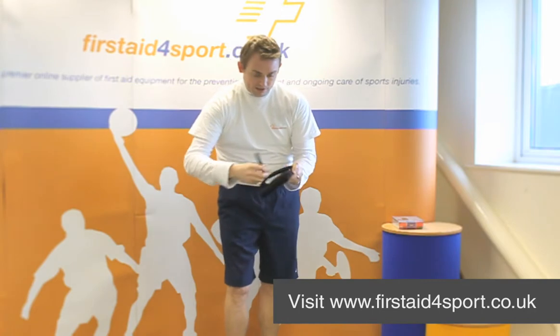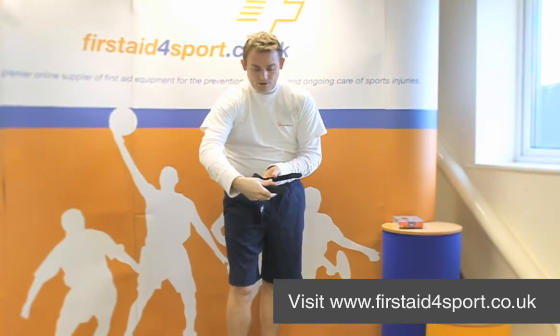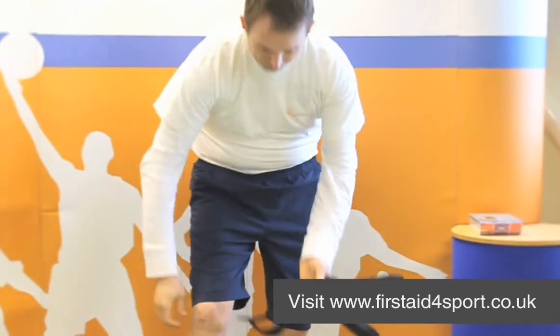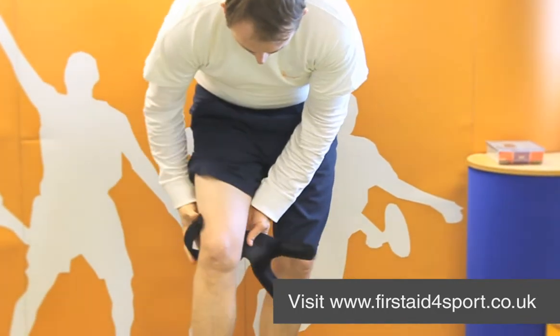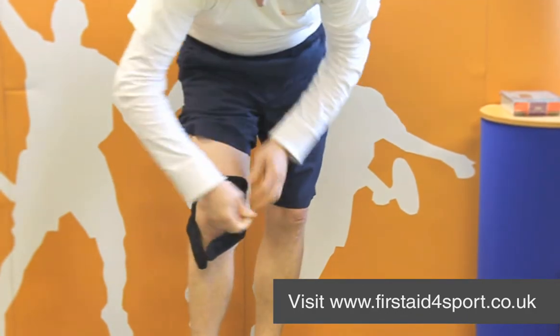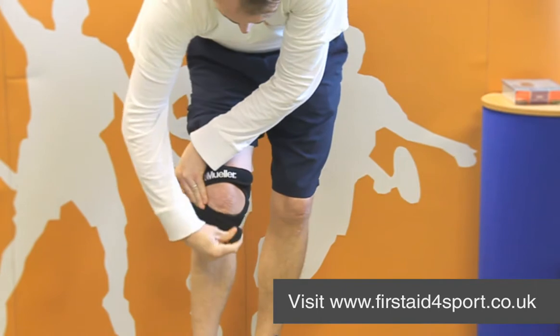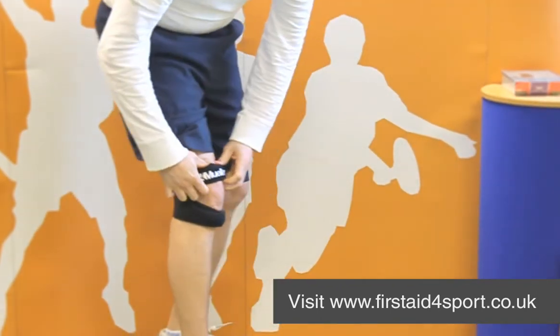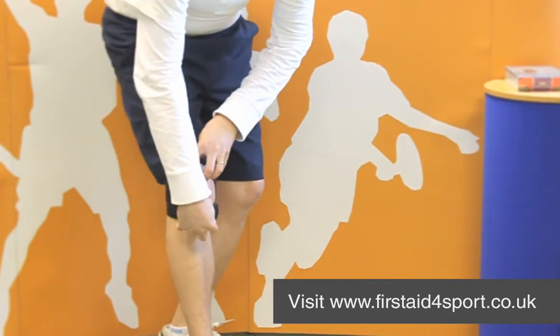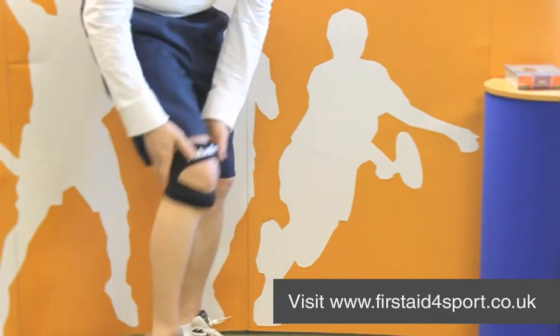This is designed with a top and bottom shock absorbing system to fit around the knee. It acts as a shock absorbing system because the band at the top and the band at the bottom just reduces the direct pressure into the knee joint and just absorbs some of the movement.